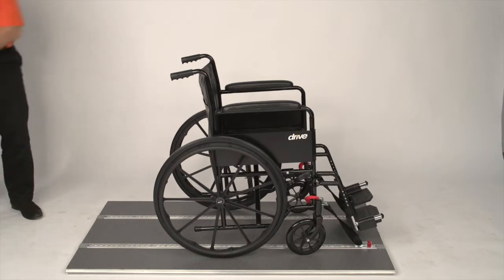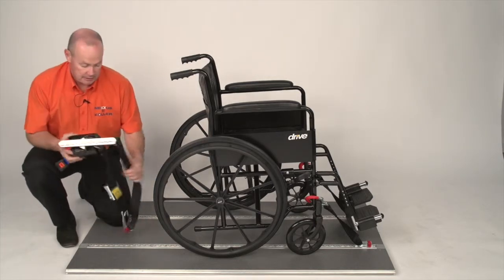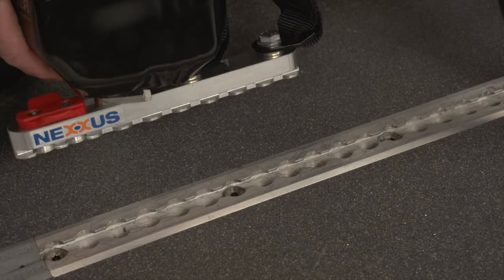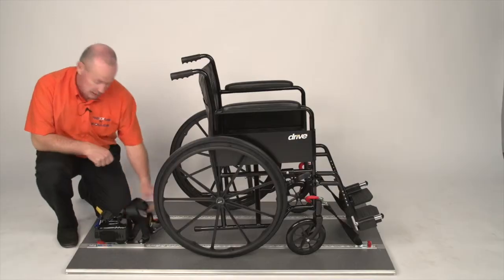To restrain the rear, the Nexus has two straps that go onto the wheelchair and your passenger harness, all combined into one unit. Put the clip into the track, again making sure we hear it click.